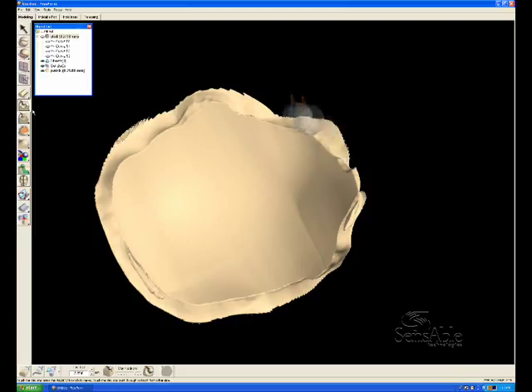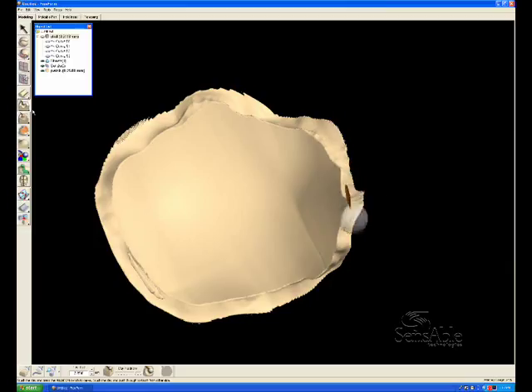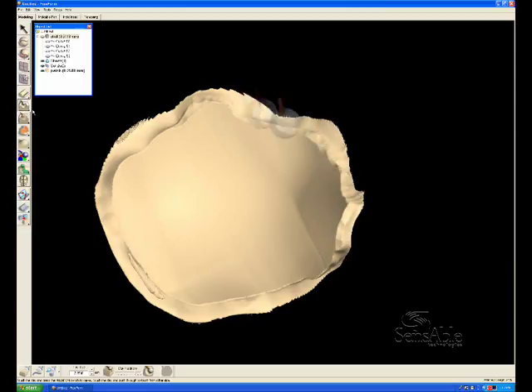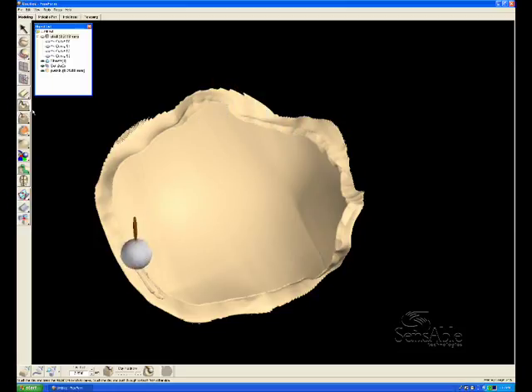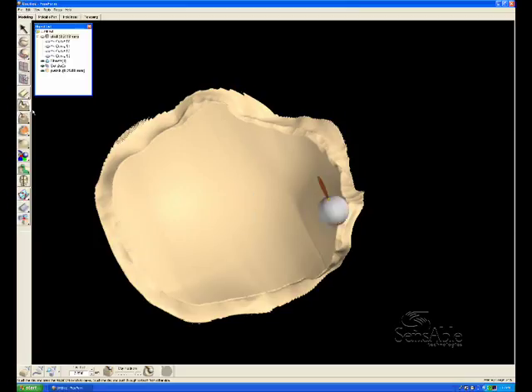So we don't want to have undercuts, especially if this is going to be cast or manufactured in a traditional two-part mold. We simply don't want undercuts at all. Also for the implant procedure in the operating room, there can't be undercuts obviously.